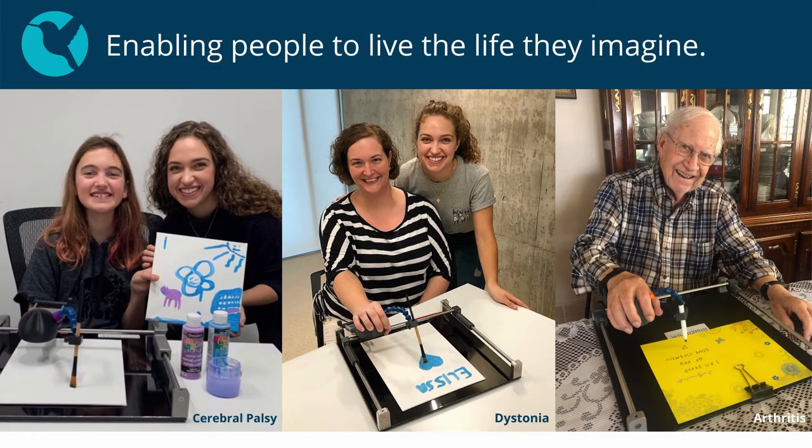Guided Hands helps to improve the quality of life and independence for people of all ages and conditions.